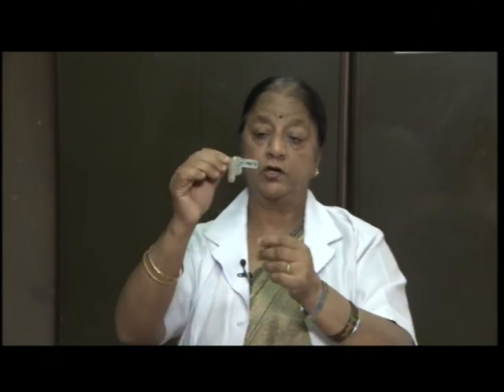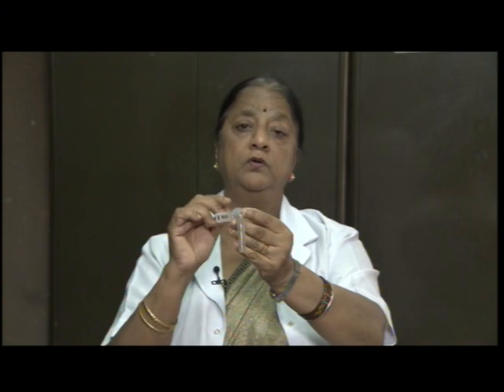So, you have different kinds of airway. This is the tracheostomy tube which can be placed in the trachea. Again, for patients who have a problem with breathing or there is a blockage, or when you want to remove the secretions from the respiratory passage. So, from one end we can do the suctioning and by this we can keep the airway patent.